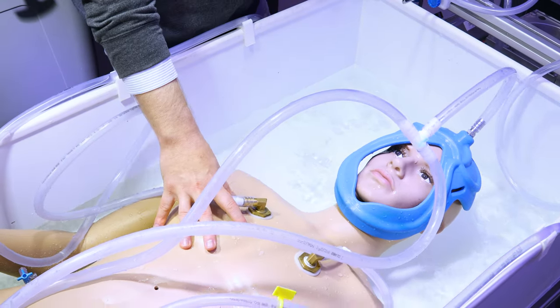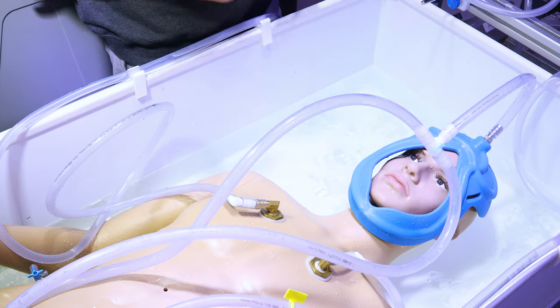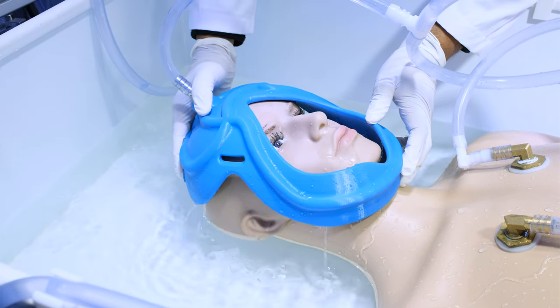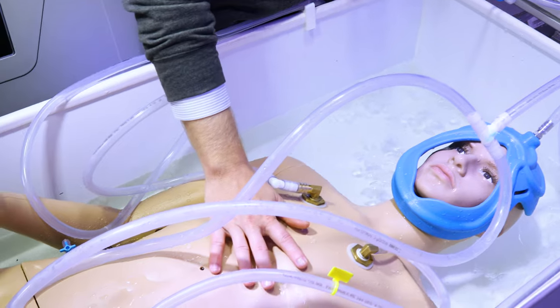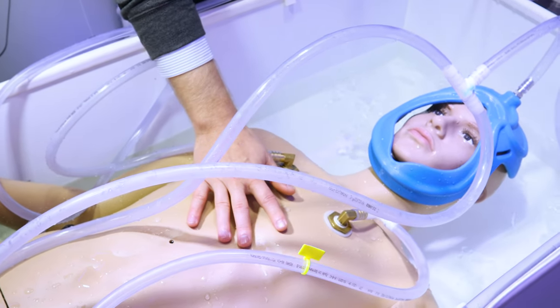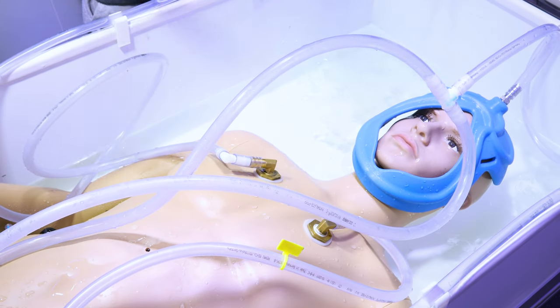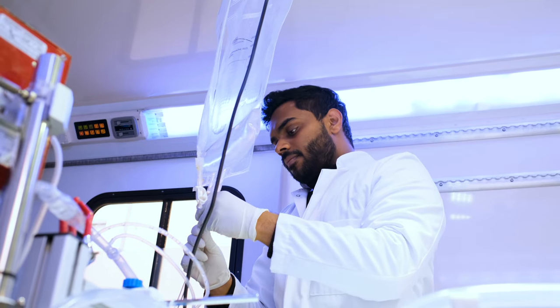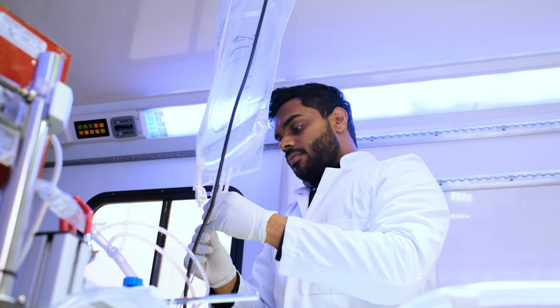Once we reach the patient's location and the patient has been declared dead, this is what we do in the ambulance. The patient is placed in an ice bath where a combination of ice and water is used to cool them down as quickly as possible. The ice water is circulated through these tubes and the cooling mast to maximize the cooling effect. A chest compression device is placed on the chest for CPR to circulate the blood and further optimize cooling. Medication is also given to reduce metabolic activity on a cellular level.